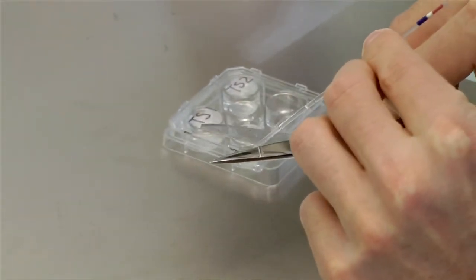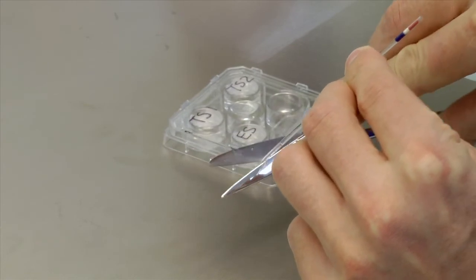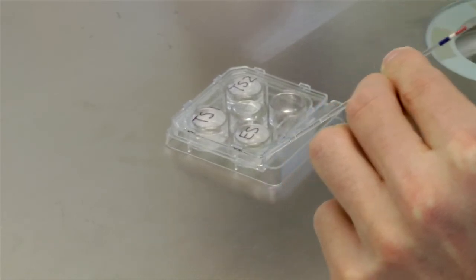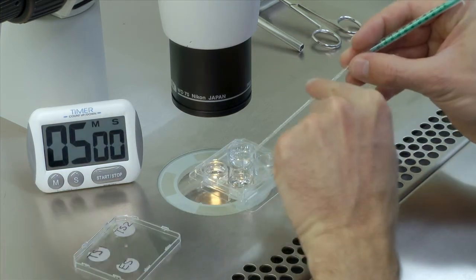Open the straw using aseptic technique and gently expel the embryos into thawing solution 1 and leave at ambient temperature for 5 minutes.